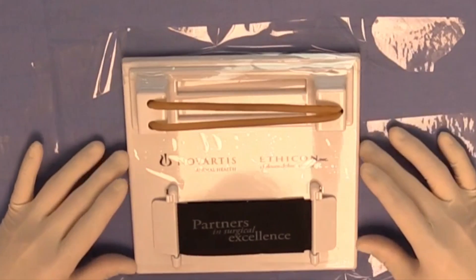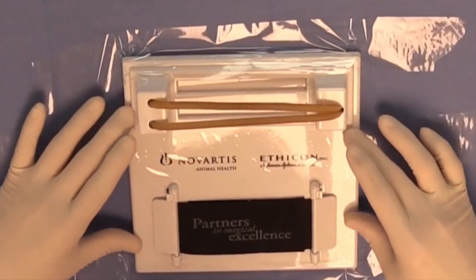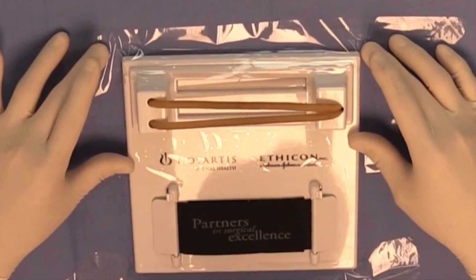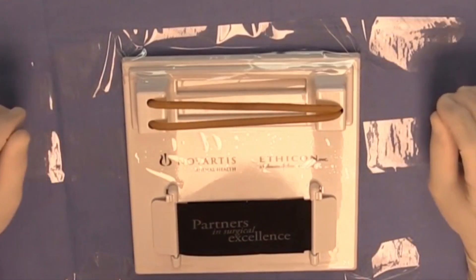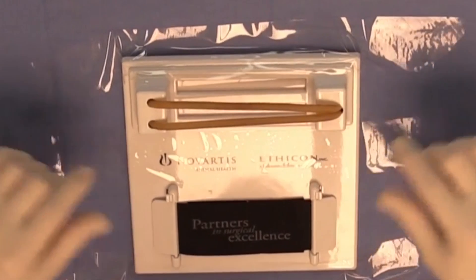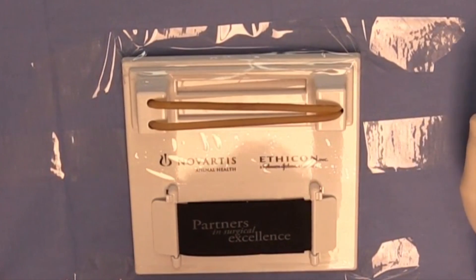The way I have the Knot Board oriented here — you can see that it's taped down — it's really frustrating not to have the Knot Board stable. It can be taped to a surface, or there are little suction cups on the back that can be wet and stuck down to a hard surface. You want to have the Knot Board secured so it's not constantly lifting up and becoming a nuisance during your practice sessions.